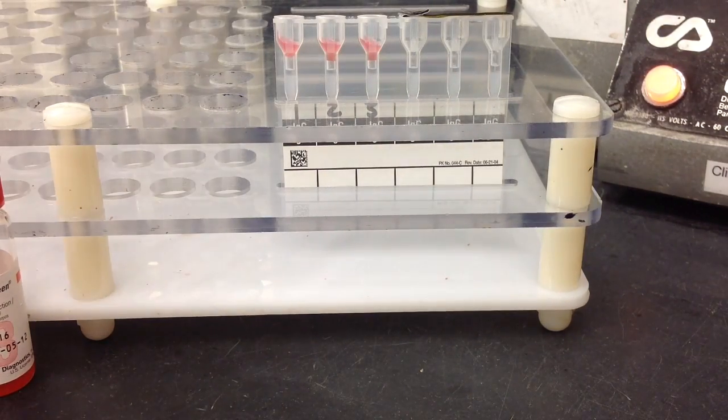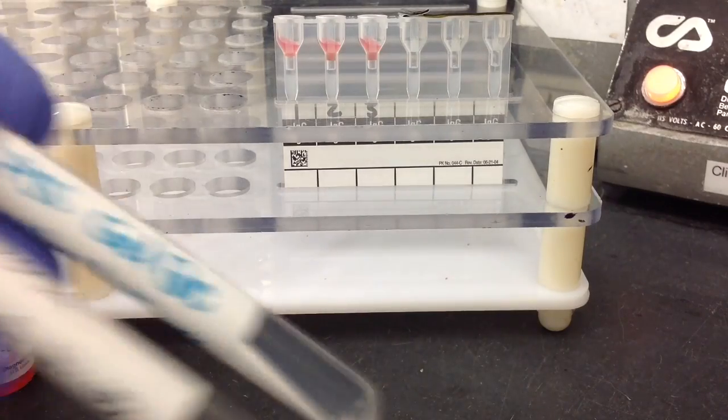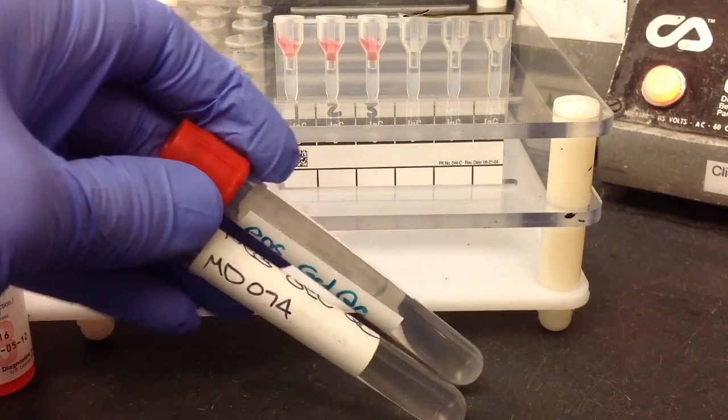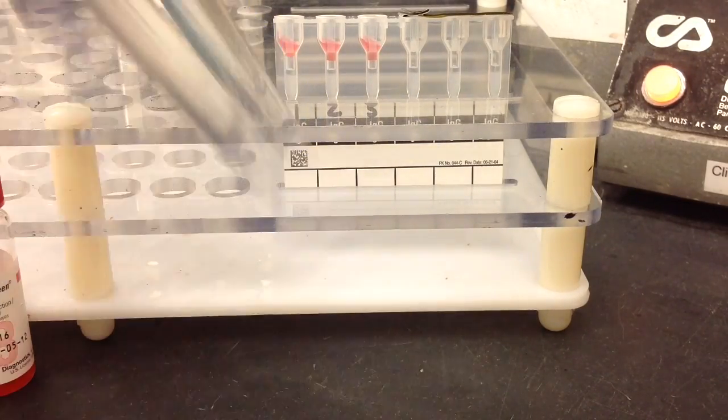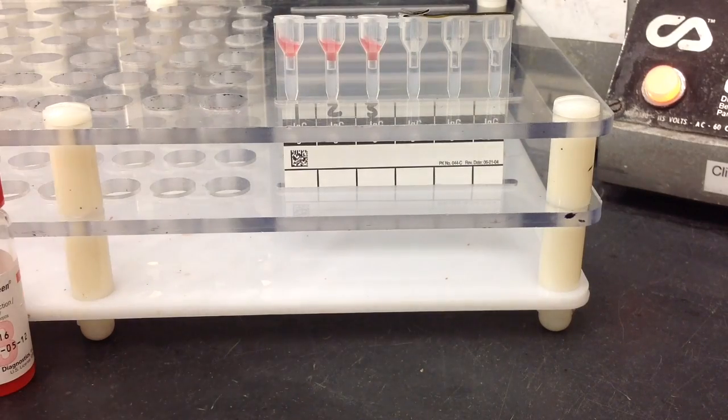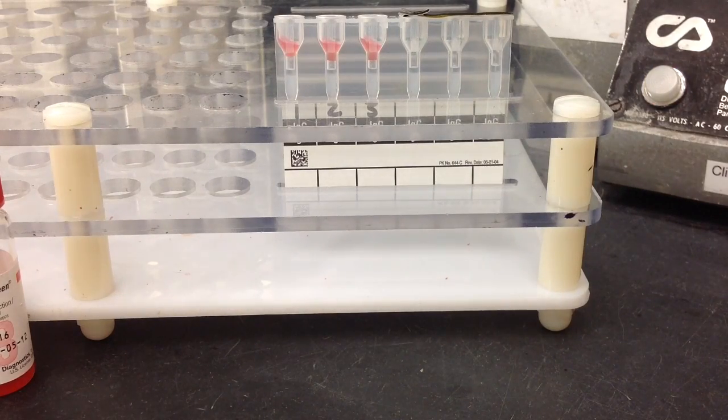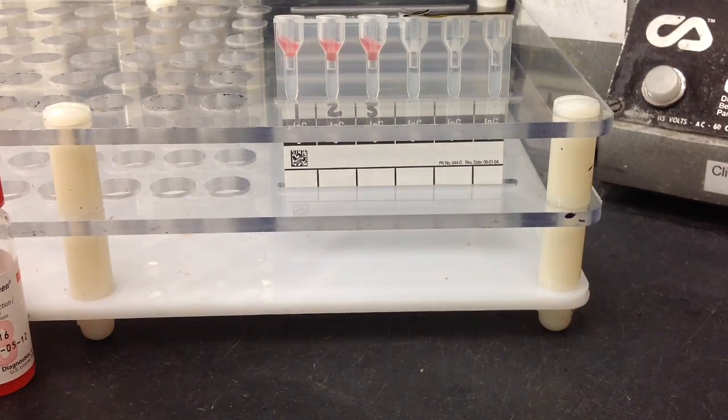Instead of using patient specimen I'm actually going to use the positive and negative QC that we have for these gel cards, and I'm just going to do that so that you can see the difference between a zero and a four plus reaction in the gel card.